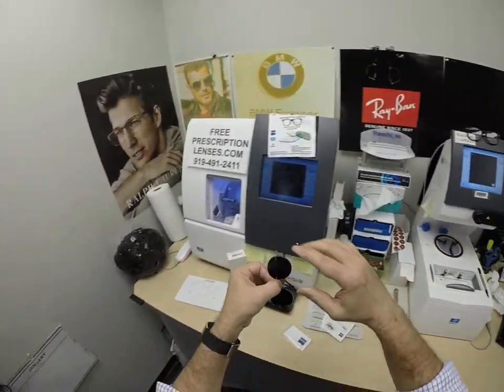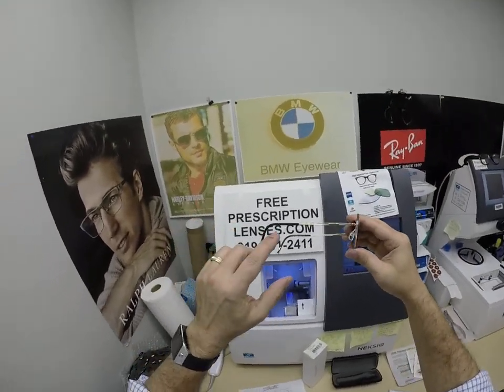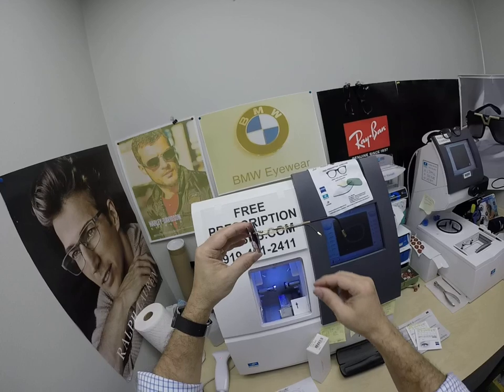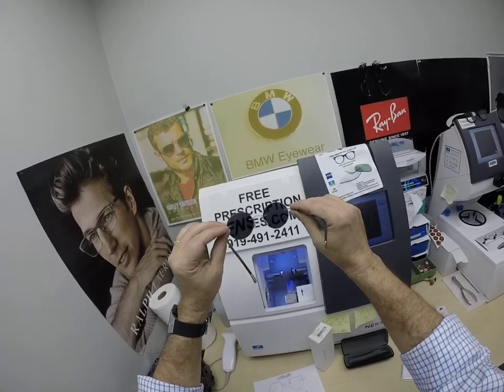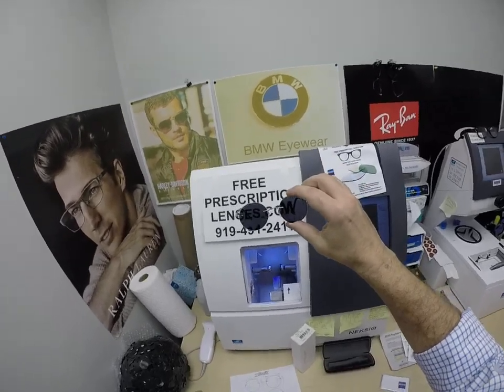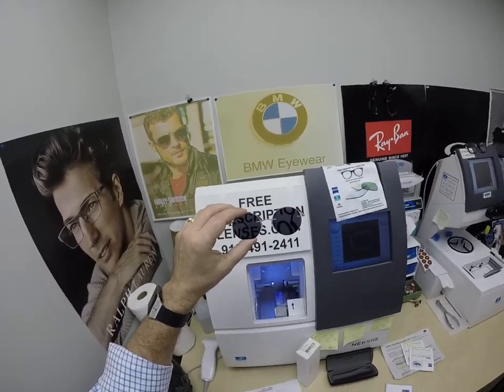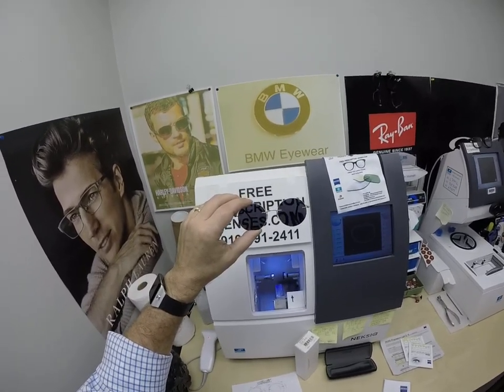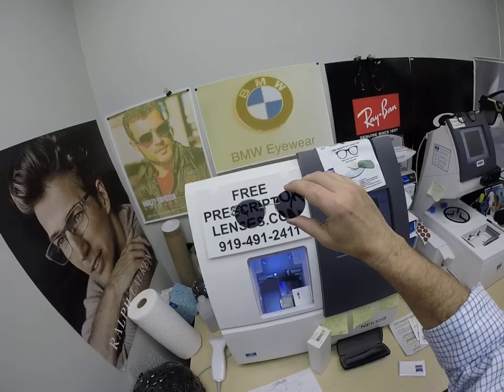A convertible or a motorcycle? Yes, they'll darken. Look at that — how cool is that? The dark gray and gold matches the temple tips. All photochromic lenses are temperature sensitive, meaning they will get darker when it's 85°F and below than when it's 95°F and above. When it's 100 degrees outside, nothing works 100%. The PhotoFusion Extra Gray are designed for extra active people who spend extra time outside and will get dark in hotter weather. In Battle Creek, Michigan in January, these will get extremely dark in the cold.